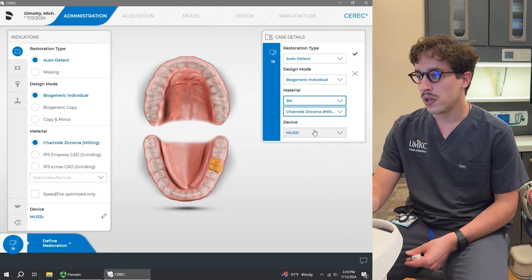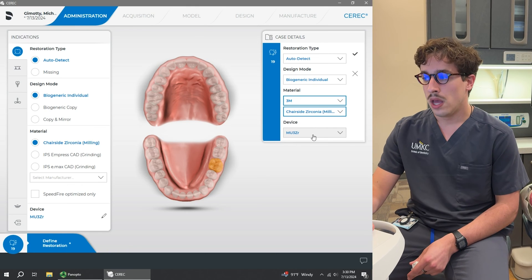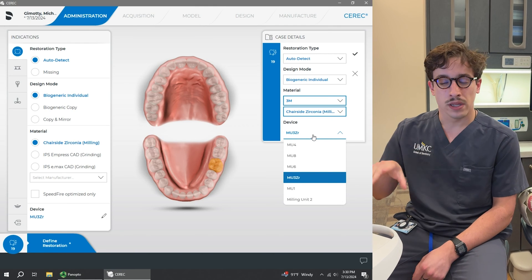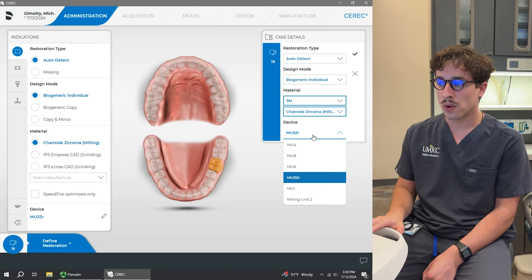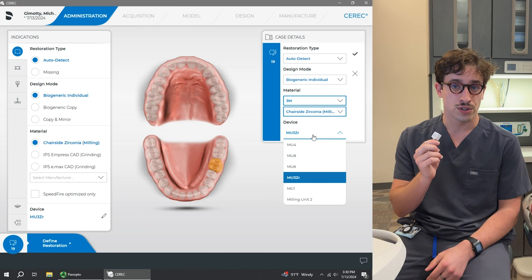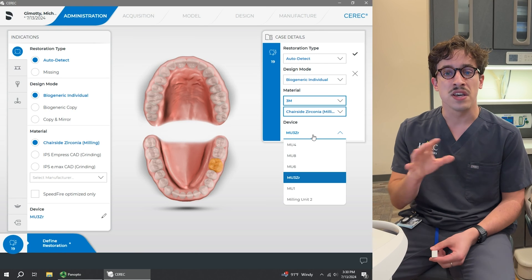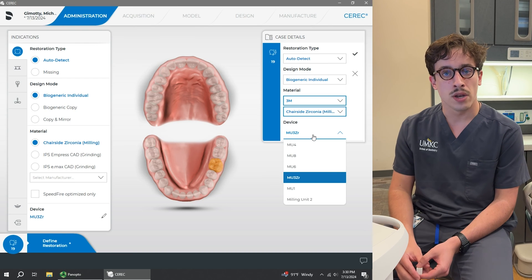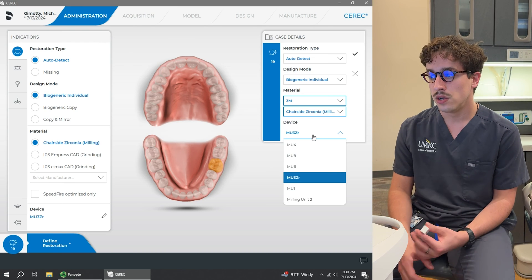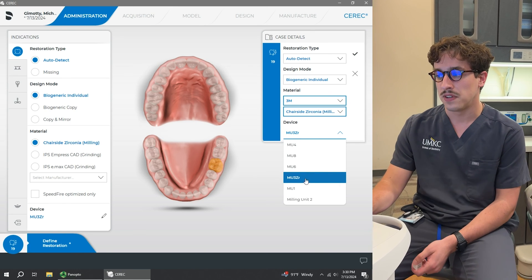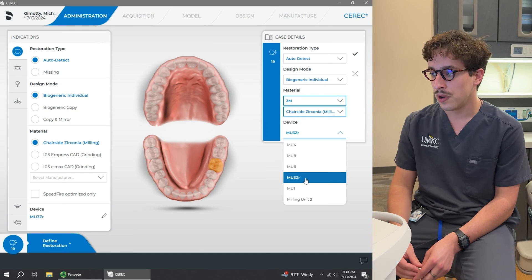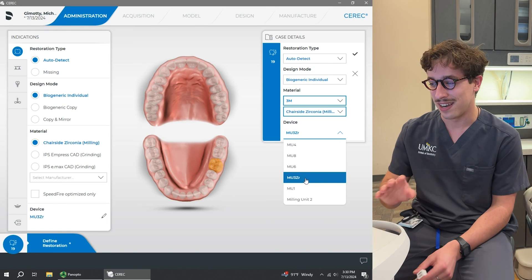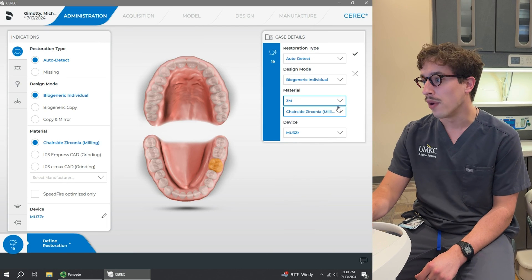So we have 3M chairside zirconia selected. And then we're also going to be choosing the device. So our milling units, we've got 8 of them in there. Not every milling unit is connected to each scanning unit downstairs. But the important ones is that milling unit 2 and milling unit 3 are only for zirconia because those require different burrs than Emax. All of the other ones are okay to use for Emax as well. I would recommend using either 1 or number 8 for Emax. And like I said, 2 or 3 for zirconia. Sometimes you can see it like this on here is that we actually have it renamed in here adding a ZR for zirconia just to make it a little bit easier for you. I'll be honest, not all of them have that selected. But again, we're going to select either 2 or 3 for today. So let's just stick with number 3 right now.